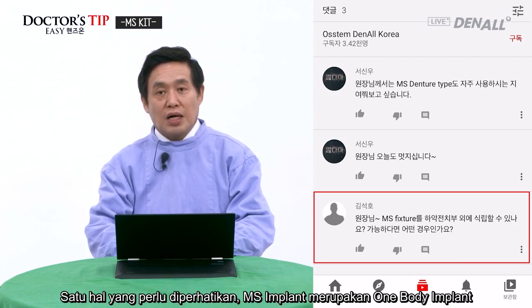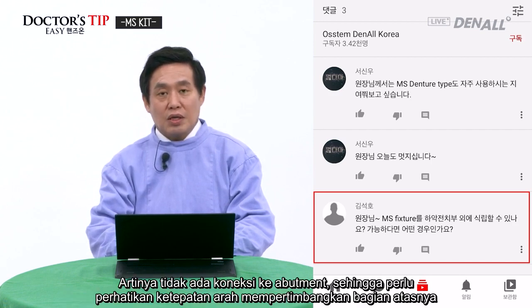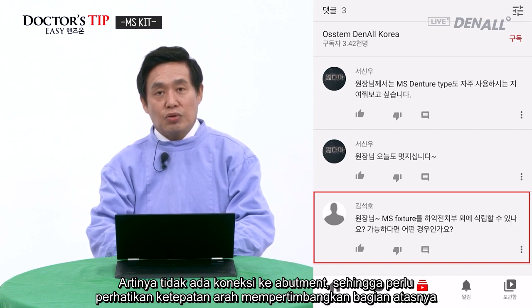One thing I would like you to be mindful of is that the MS implant, again, is a one body system, meaning the fixture and abutment connection is not there. So you have to set the right direction considering the upper part.